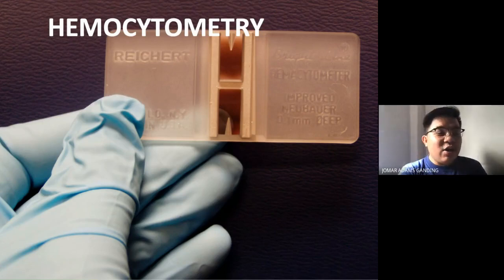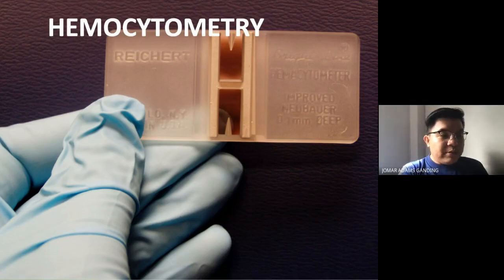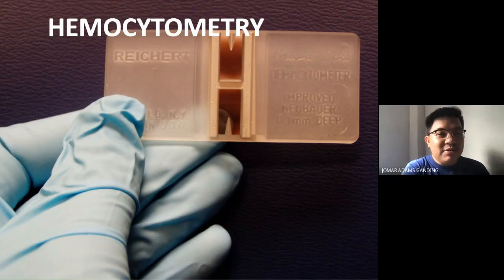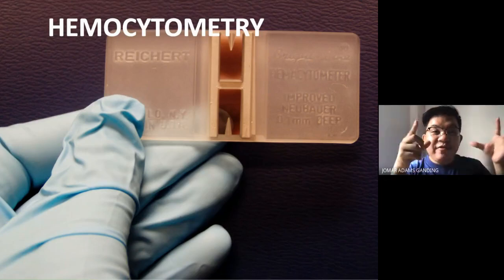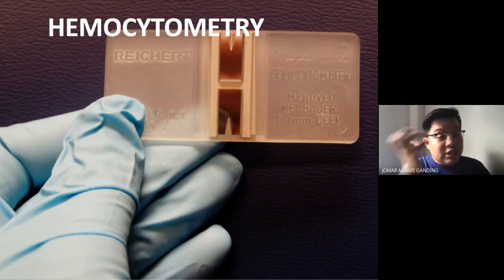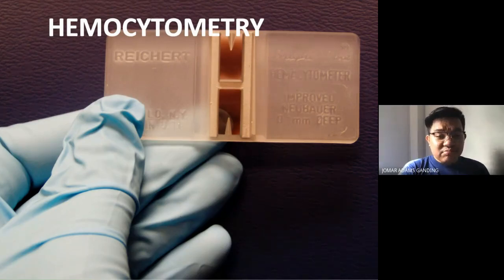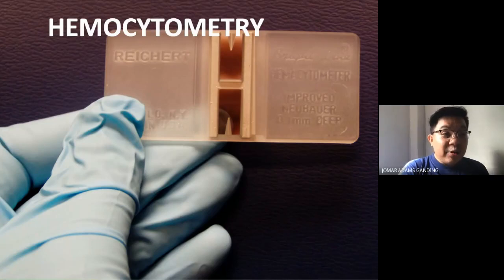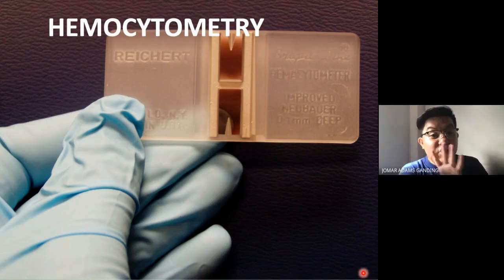When it comes to the Neubauer chamber, you may be wondering how blood cells were counted in the old days without machines. We do not count on a peripheral blood smear because that will only be an estimate. Here, we will be able to more accurately count RBC and WBC.